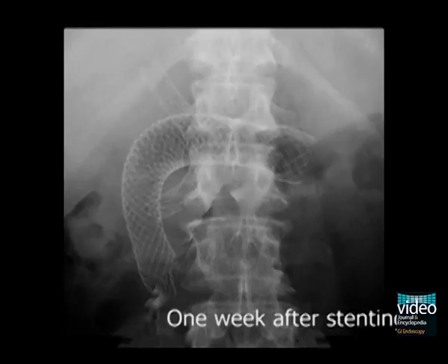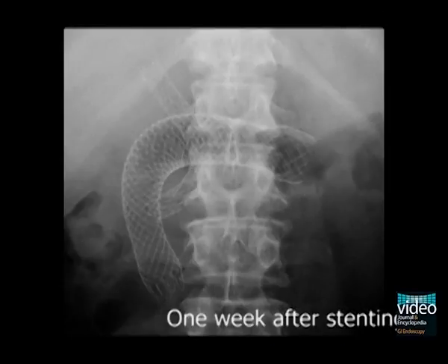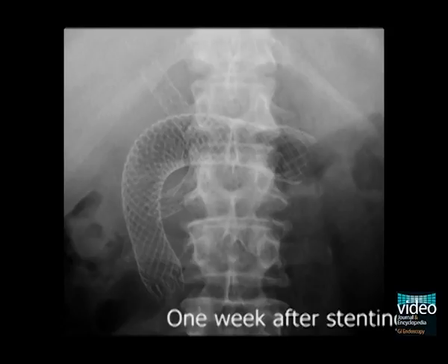This is an X-ray photo one week after stent placement. Because the proximal part of the stent was held by the pylorus, it has remained flexed at the superior duodenal angle.